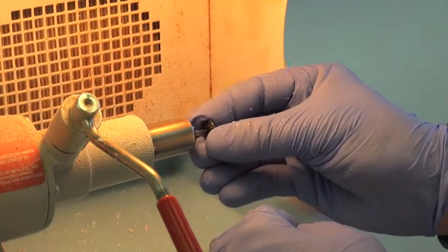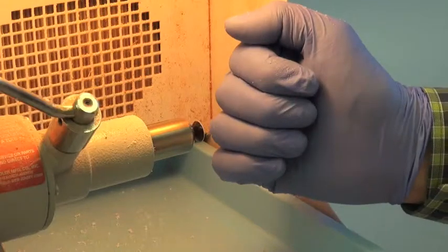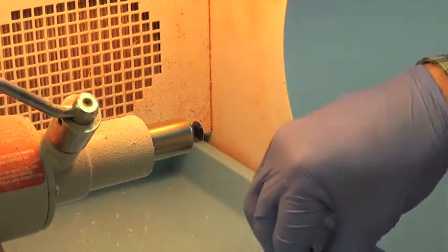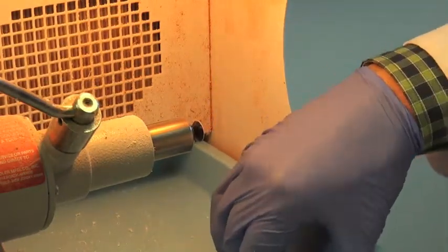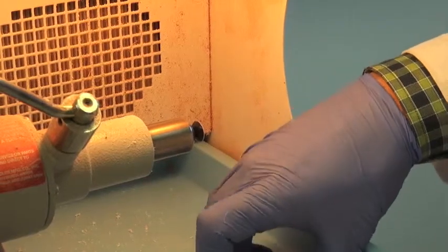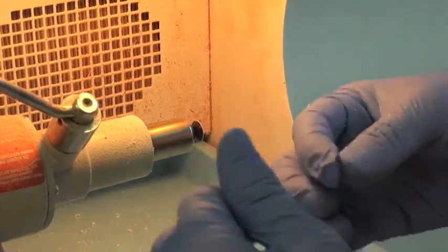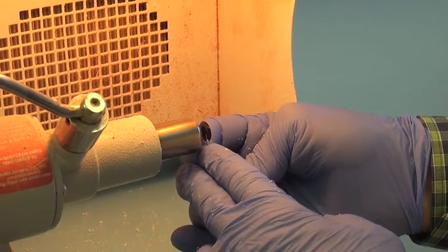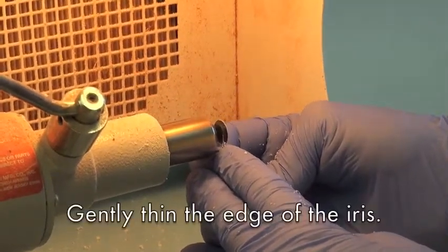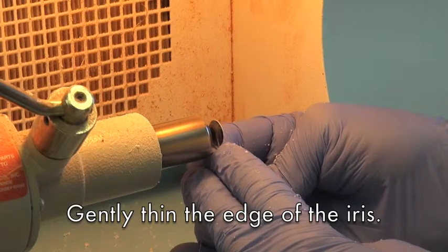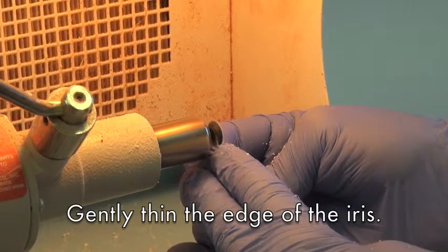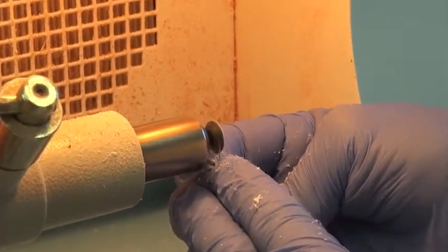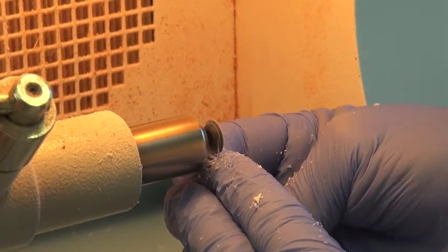By reducing the steepness of the curve of this outer edge, you're going to allow more sclera to form over the iris image when it's being inserted into the prosthesis. So we're gently just going to thin the limbal edge slightly to allow more sclera to form over the iris image when it's embedded into the prosthesis.